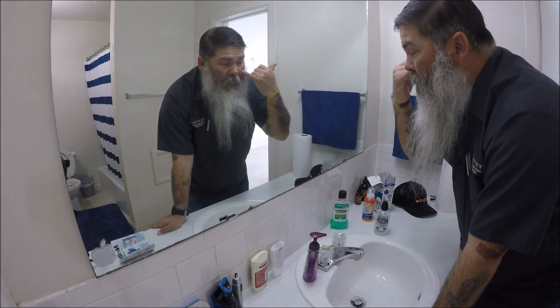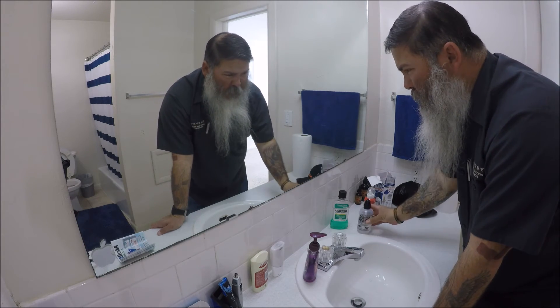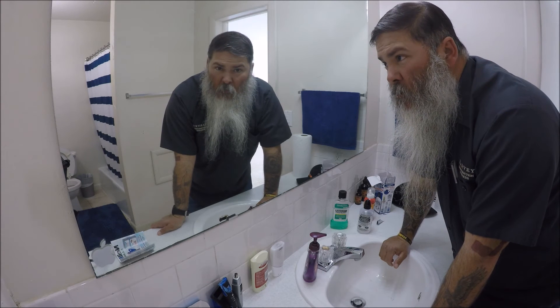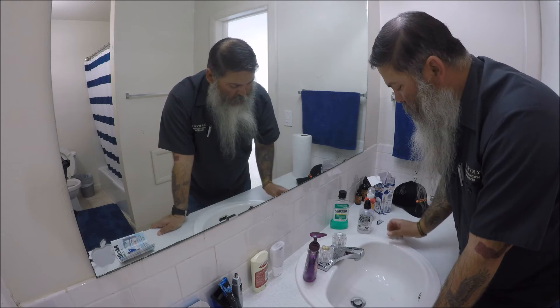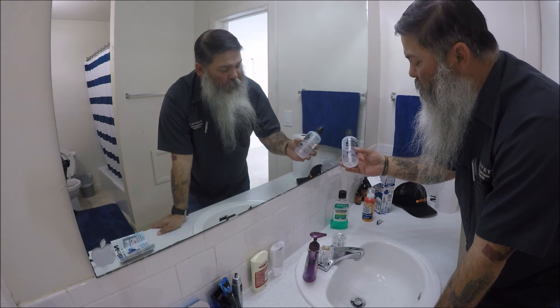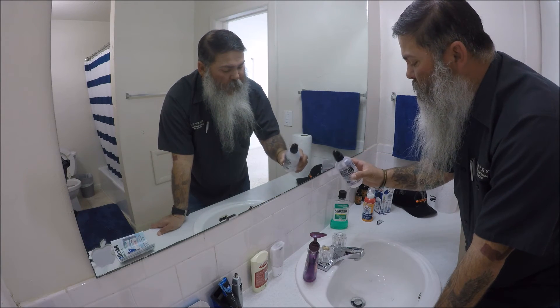It's all cold back behind here because I didn't heat this up or anything. So there you have it — if I can do it, you can do it. Just make sure you're still kind of squeezing it before you take it out of your nose, or you'll kind of suck some of that back up in there.